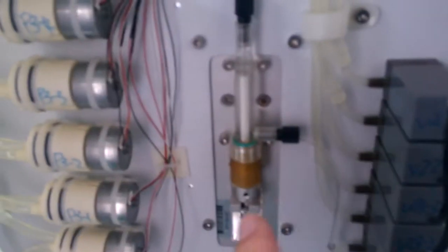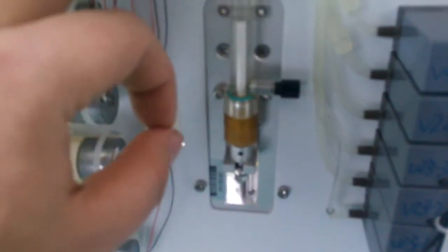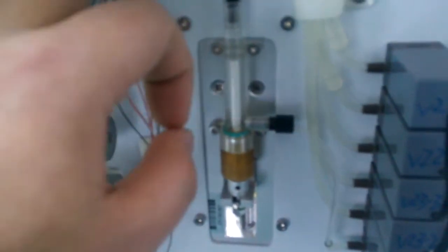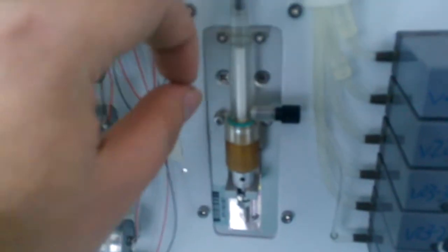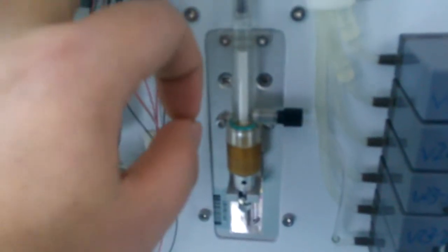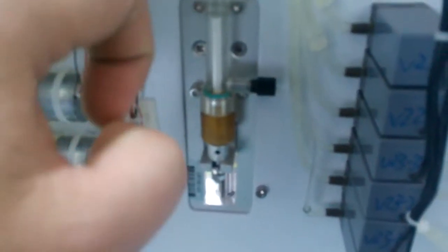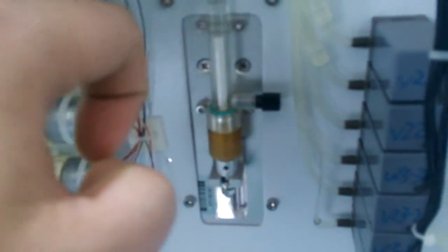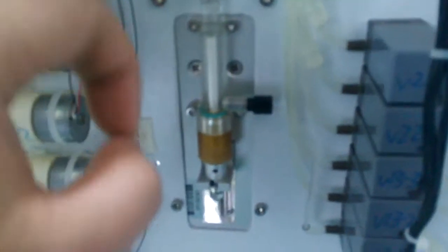This is the dispensing flow. Dispensing pump. When taking samples or taking reagents, it will up and down. It's very precision. About 0.1 micro liter.